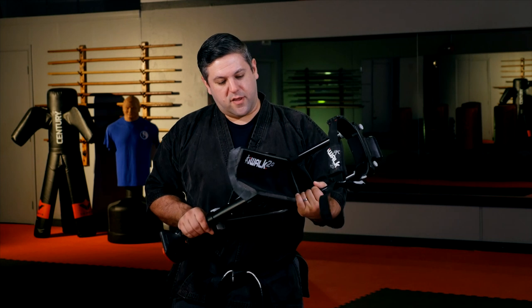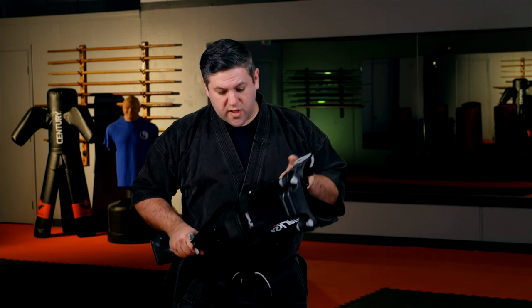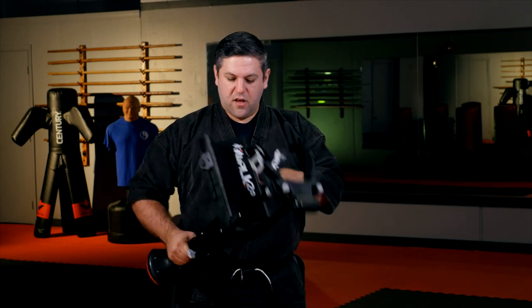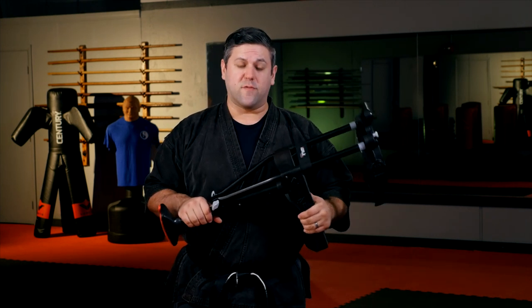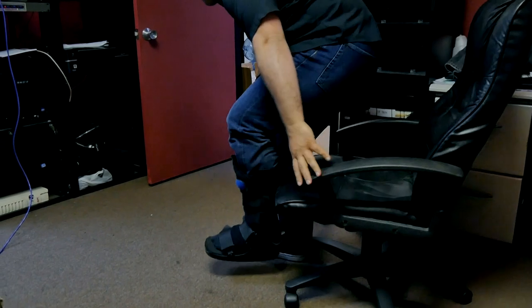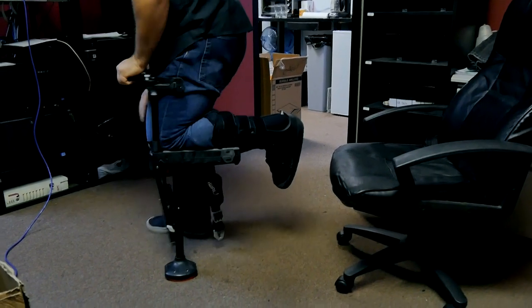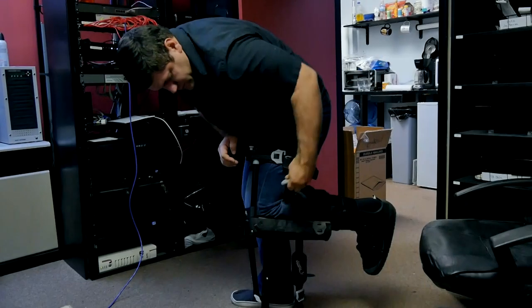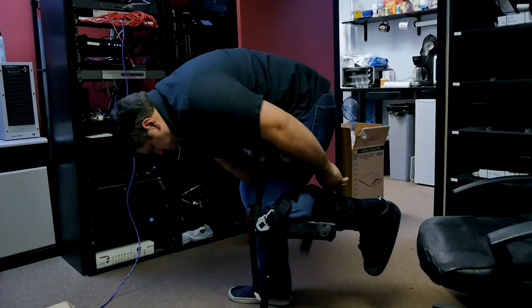Now let's talk about durability. This sucker is tough. It's plastic and metal, and the plastic is really thick and durable. This thing got knocked around, dropped, and banged around. It's got a few scratches and nicks, but you could easily use this several more times if you had to. This is really good construction — I was very pleased with it. If you put it together right, at no point does it feel rickety. Everything's a nice tight fit, locks down tightly, nothing wobbles. Once you make all your adjustments, this sucker is solid. I give it a 10 out of 10 for construction and durability.